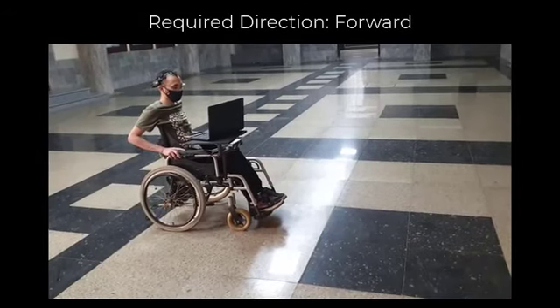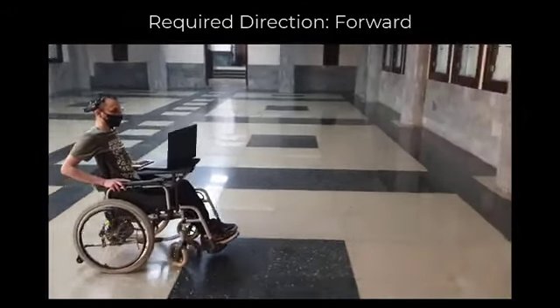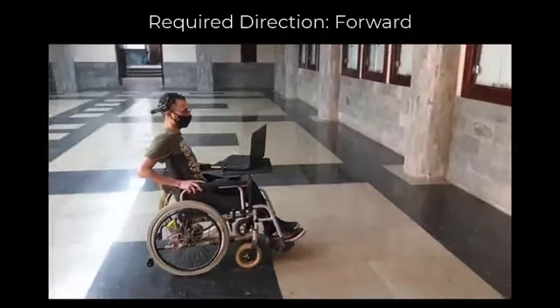Obstacle detection is one of our wheelchair security features. In this demo, we are going to show how obstacle detection works with the manual mode. At the beginning, the user is giving the system forward commands continuously. The first one has been done successfully.